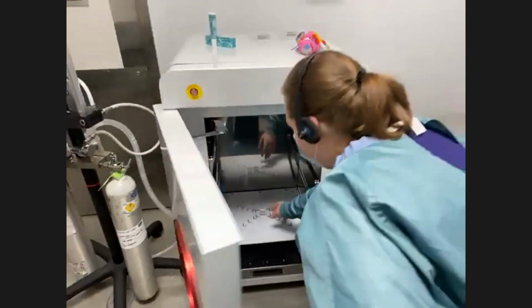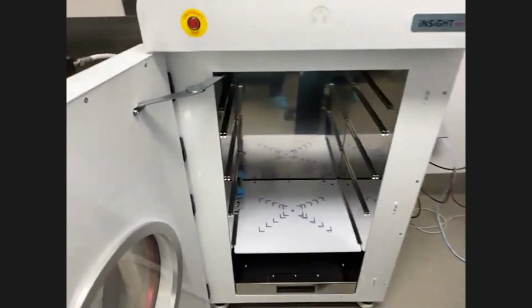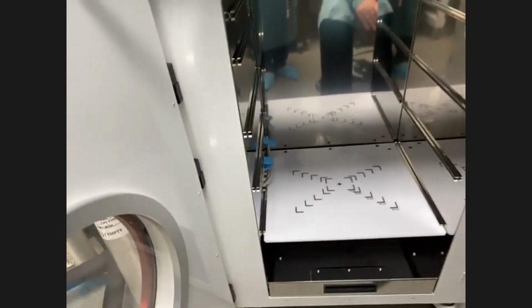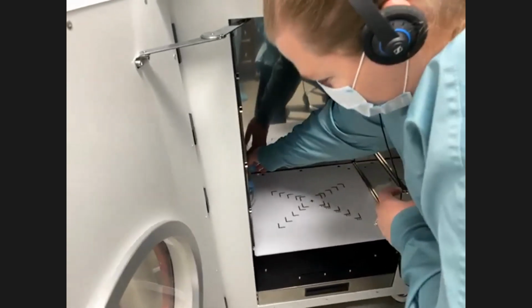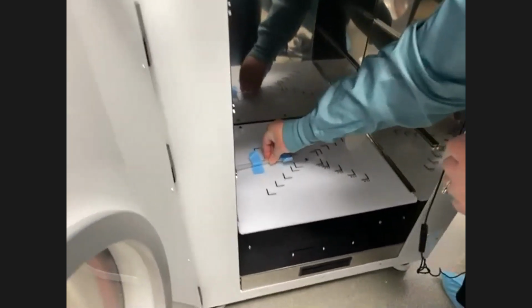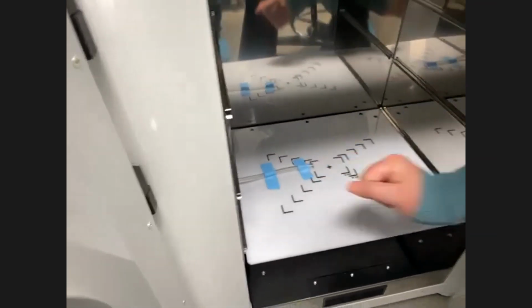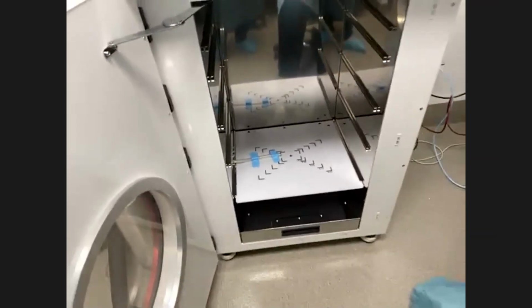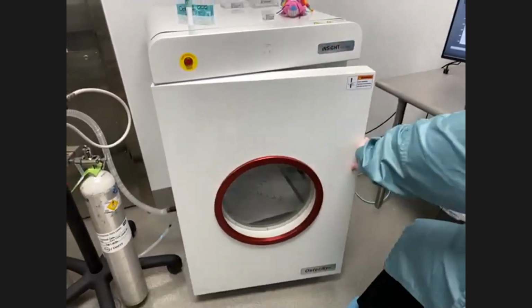The next thing that we want to do is start setting everything up for the animals. And so with that, we have the integrated anesthesia. For the daily test, I put the nose cone up and out of the way so that it doesn't interfere with that test, but you'll see now what we do to incorporate it into the images, but yet not have it interfere with our measurements. So I'm just going to position the nose cone on the platform here. Okay, so that should allow us to have the mouse right in the center of the imaging field of view.